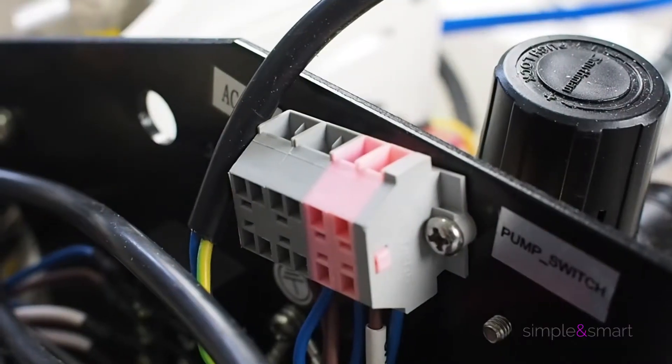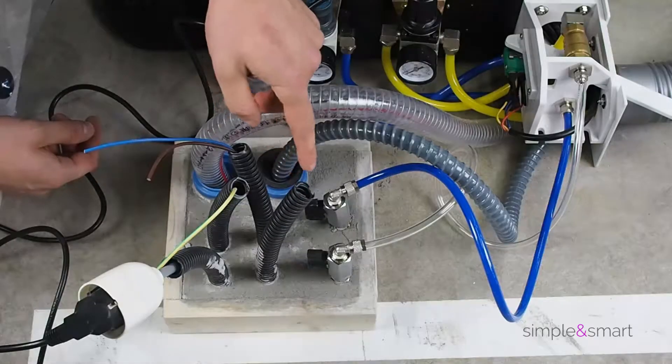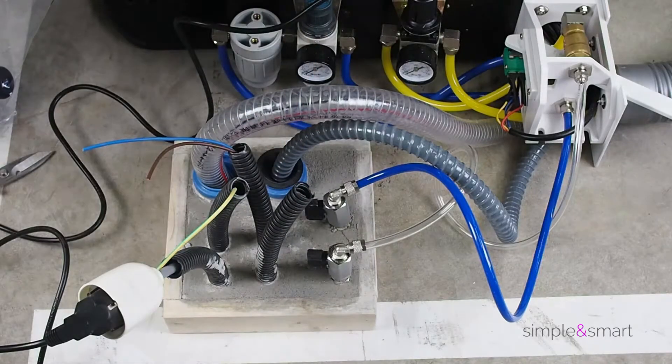Leave an empty tube in case a cable will be necessary for the connection of the unit monitor or PC.